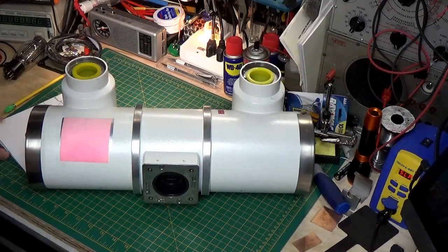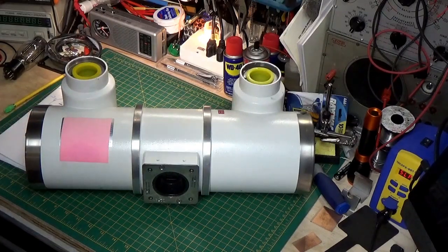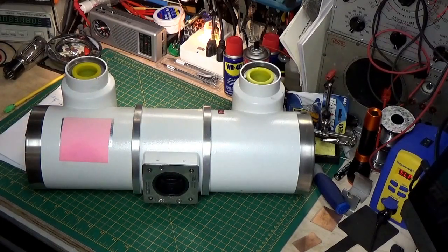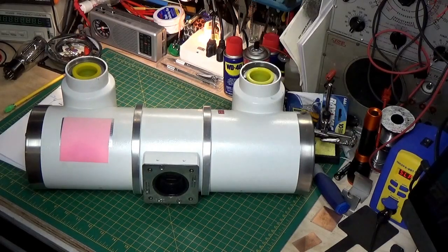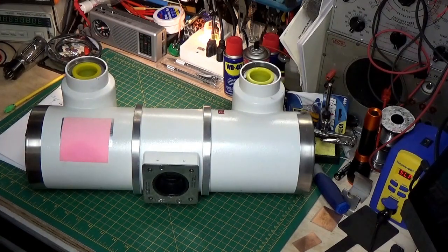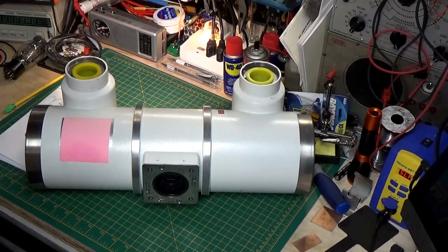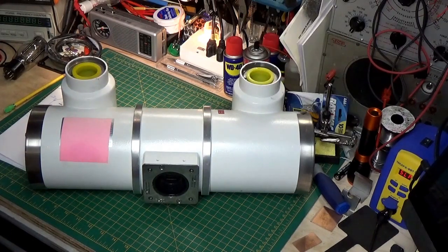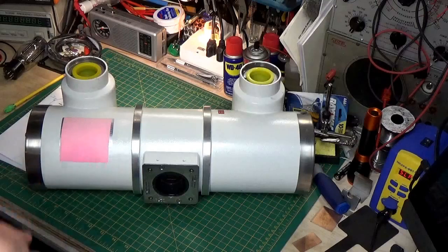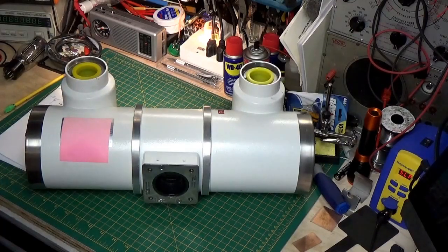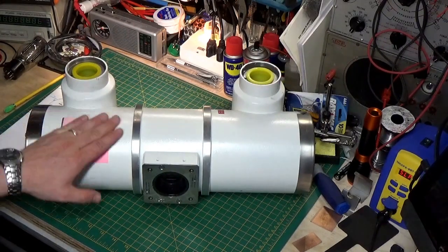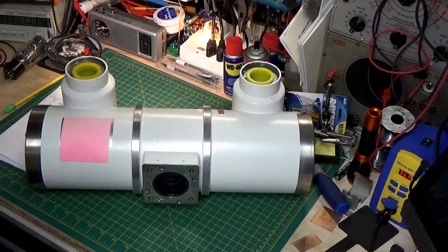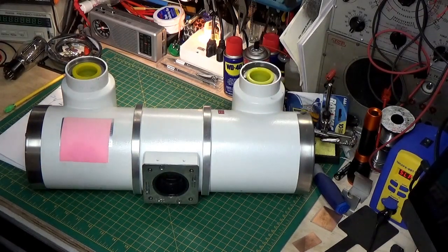And the bottom line is, it was exposing film that was sealed in a light-tight packaging, but it could still expose the film somehow. And he deduced that that radiation, or that X-ray, must have some sort of property to where it can penetrate an opaque object. So, it propagates through material differently than visible light does. So, after experimenting with it, he did determine that, yes, X-rays can penetrate, but there's other things that happen.